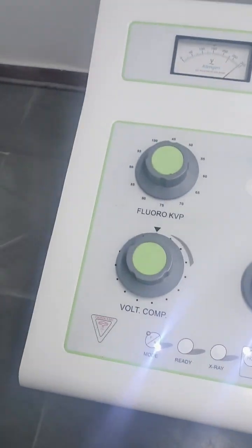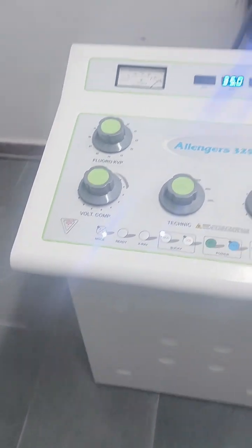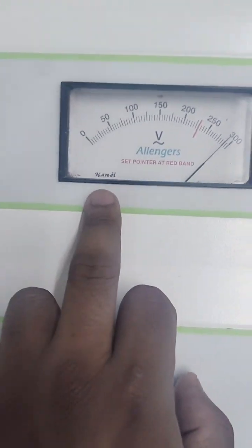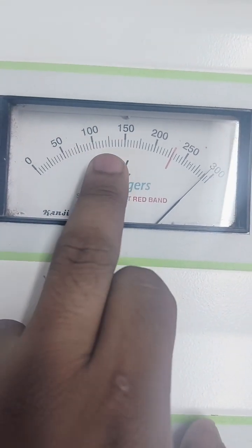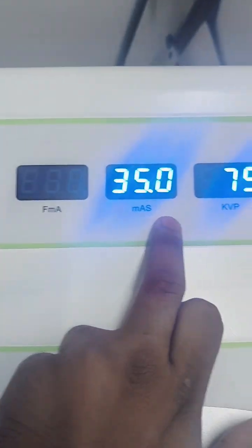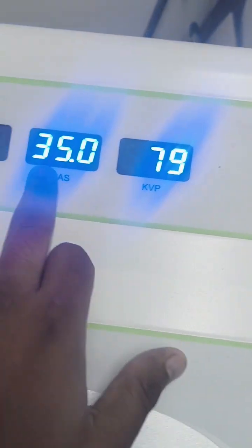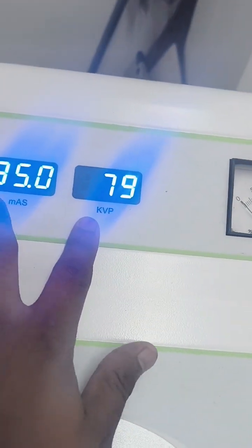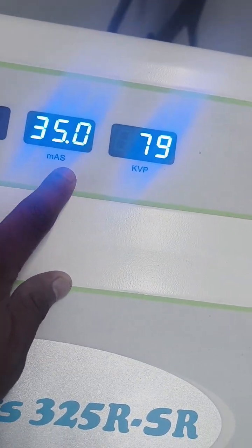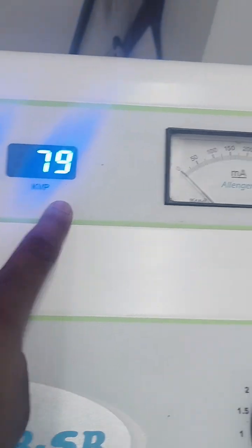These are the control panel. The voltage is showing 0, 50, 100, 150, 200, 250, 300. Here it is showing mA, mAs, and kVp — these are most used in radiography. mAs is milliampere-seconds and kVp is kilovoltage peak.